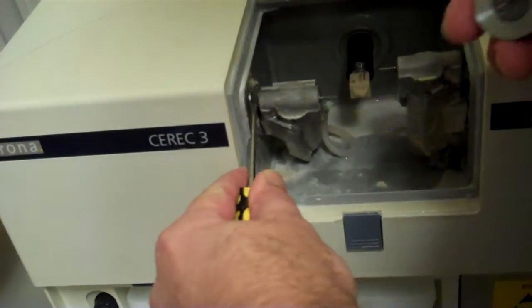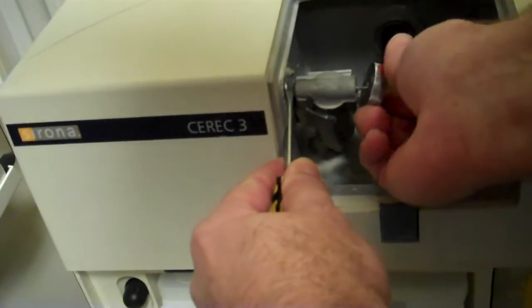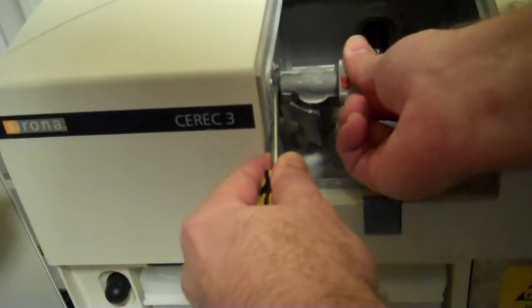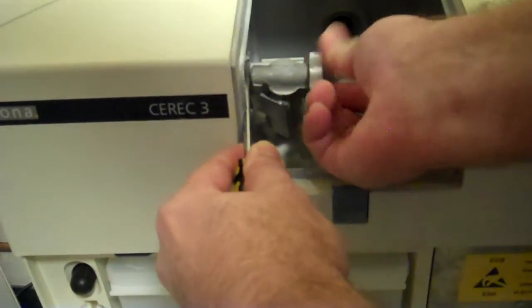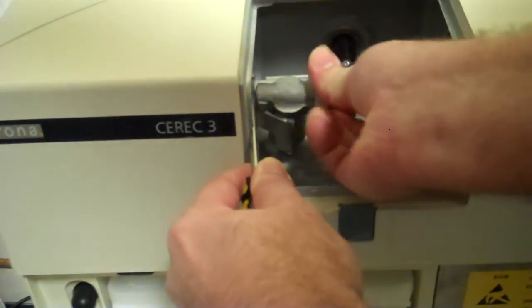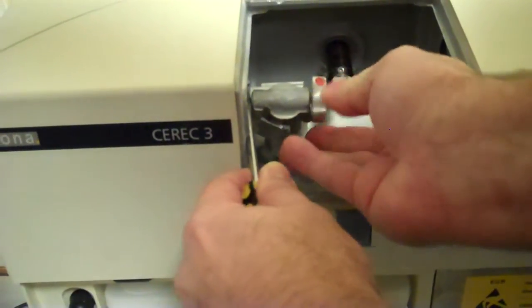I torque it just a little bit to one side so it'll engage. Slide that over, you'll feel it grab, you twist it, and you'll feel it break loose.